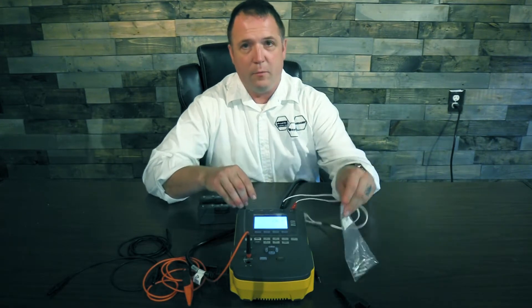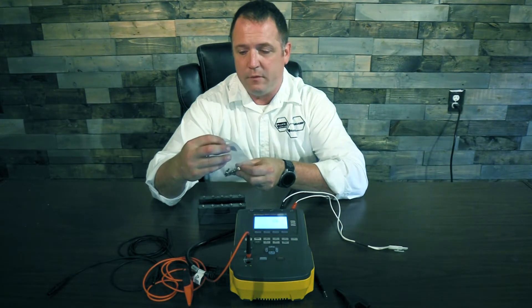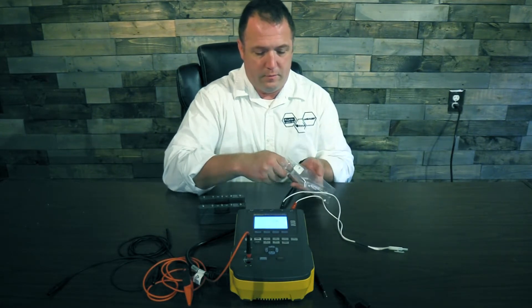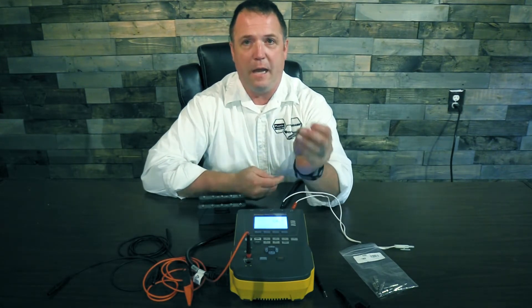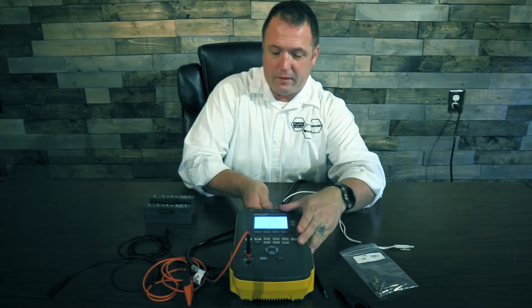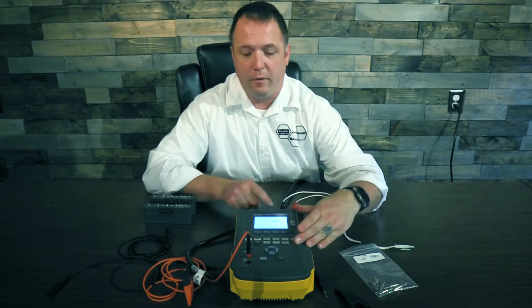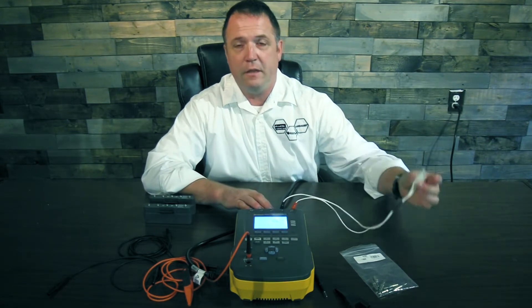We'll need the help of these adapters — the part number on these is 246-2072. I'll get three of them out. What they are is a snap-to-banana pin adapter. I'm then going to put them in these three ports just like this. I hook our three-lead ECG up right to these ports — here's your three-lead ECG.